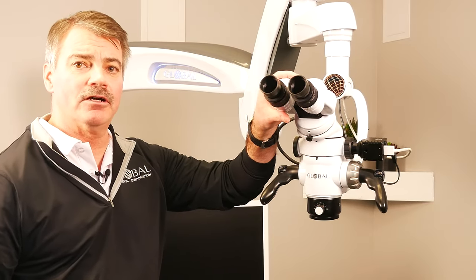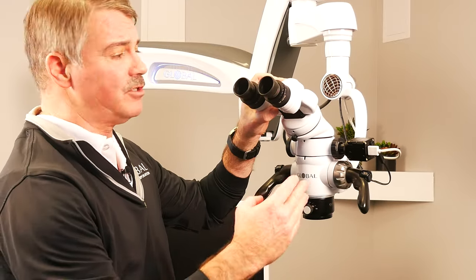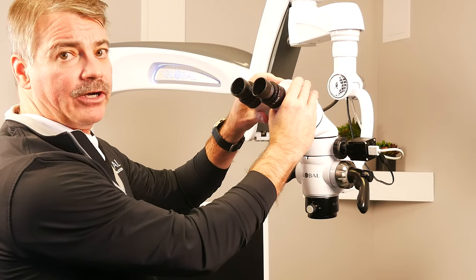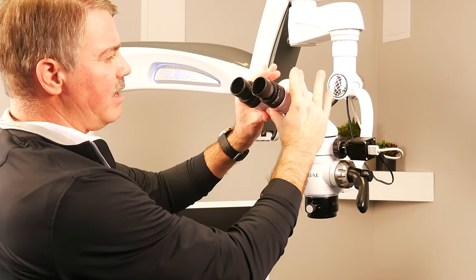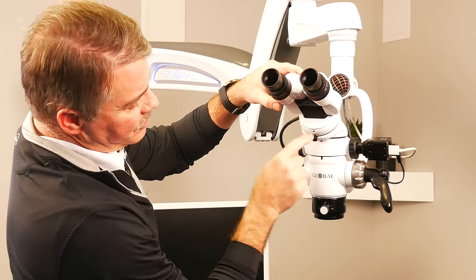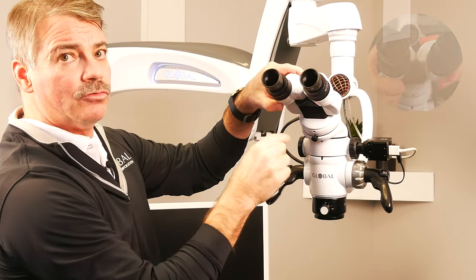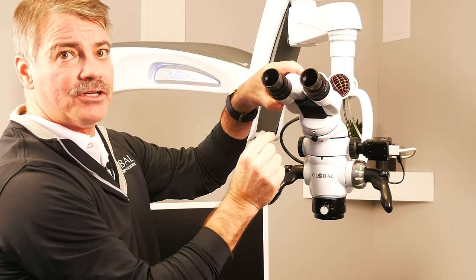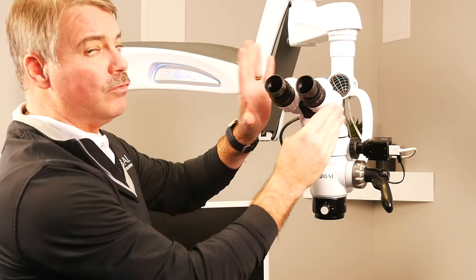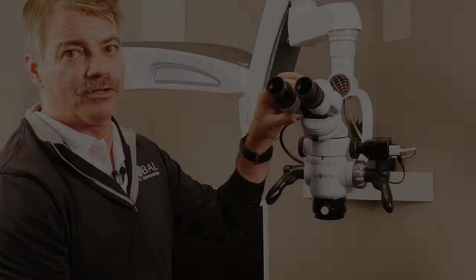Another important aspect of the binoculars is the movement itself outside of the articulation. To get the pupillary distance set to the correct position for the operator, you simply grab the white part of the binoculars and rotate in and out. You can see a little handy grid down here that gives you the millimeters of that separation, so you can document it if you're going from operatory to operatory. Although most operators find it becomes intuitive — they sit down, adjust these intuitively, and they're using the microscope.